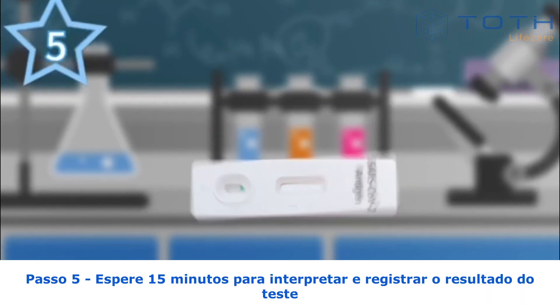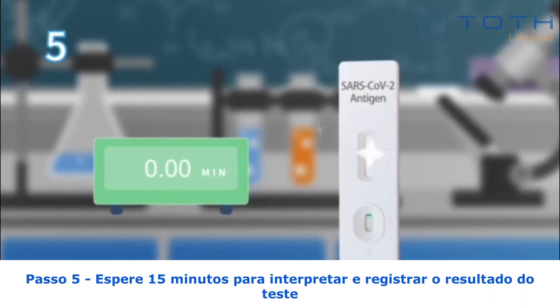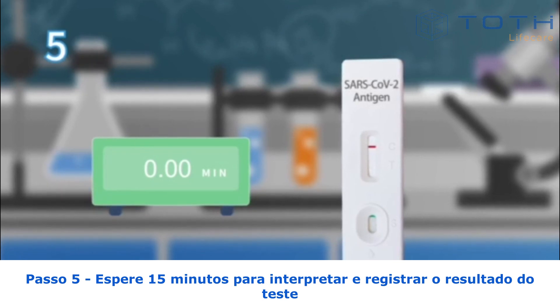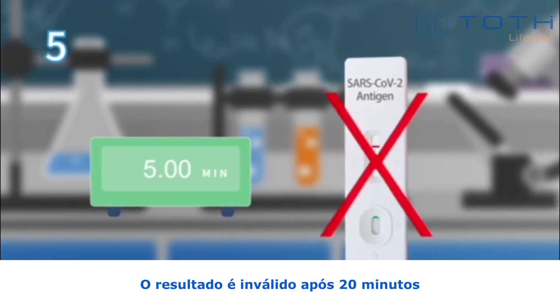Step 5: Wait 15 minutes to interpret and record the test result. The result is invalid after 20 minutes.